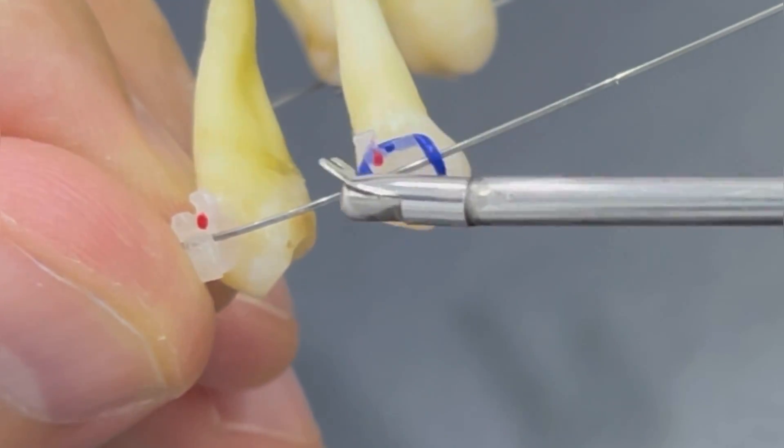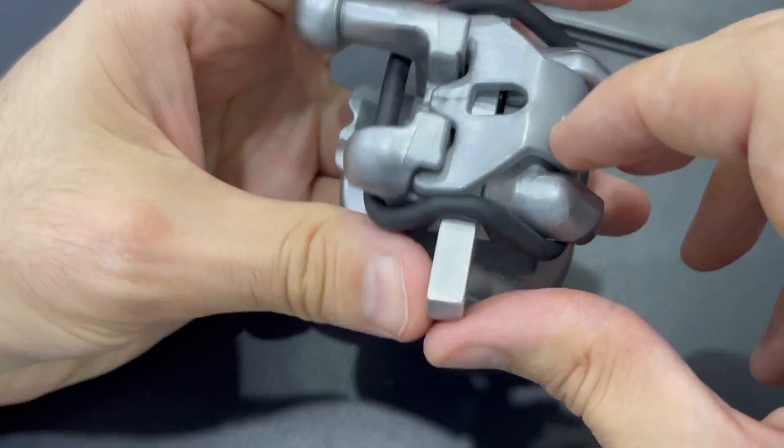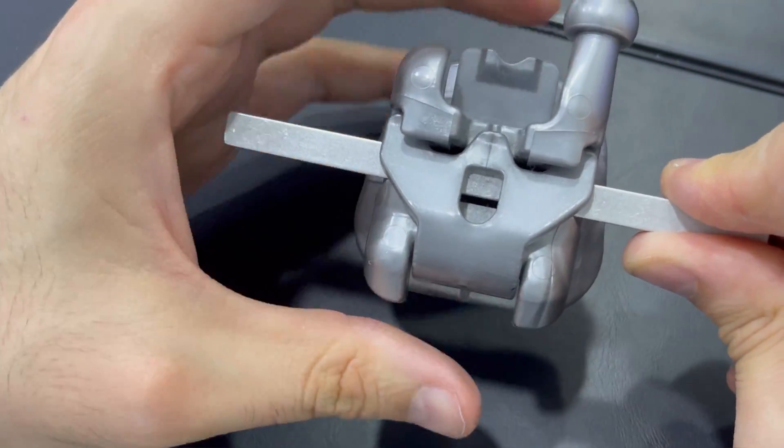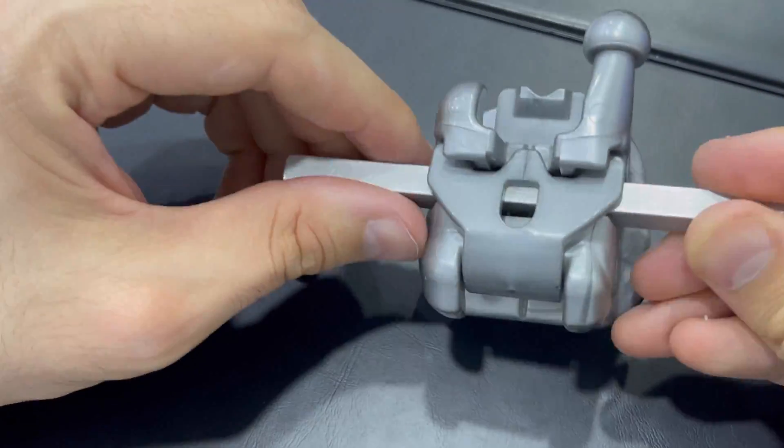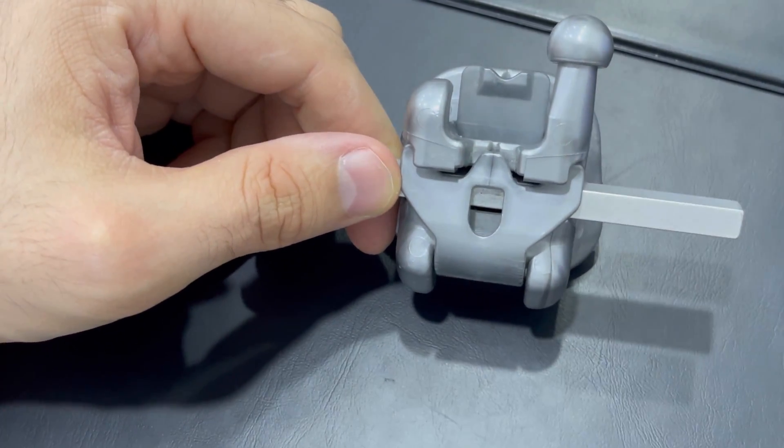Decreasing the friction when moving a tooth gives the tooth a more natural, normal position and decreases the pain to the patient. It also decreases the accumulation of bacteria because of the rubber.